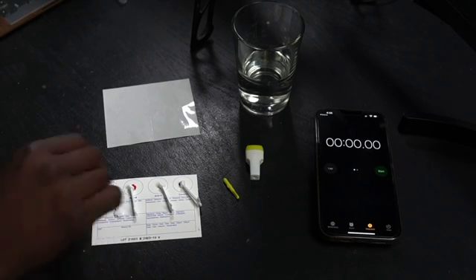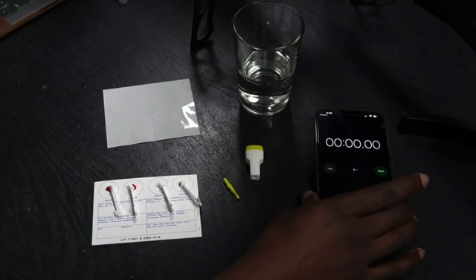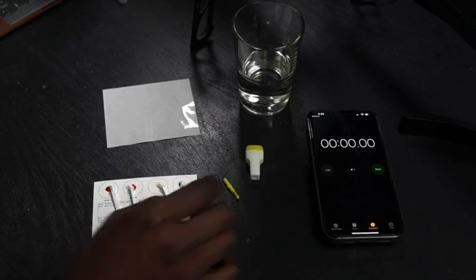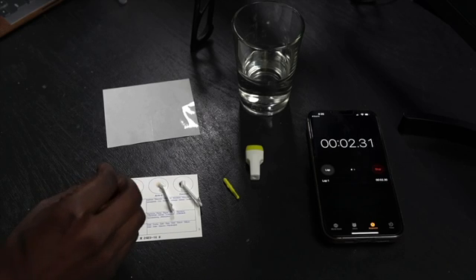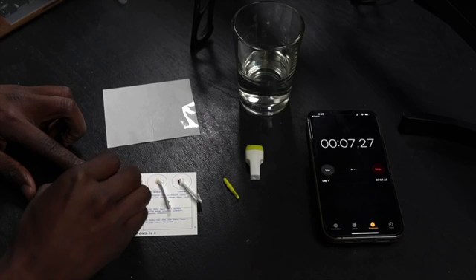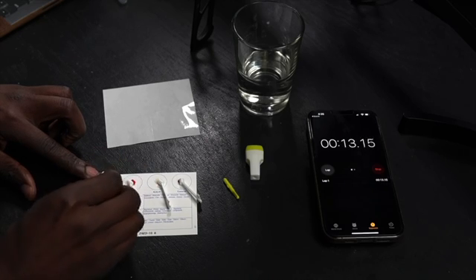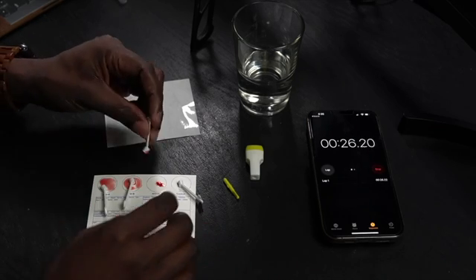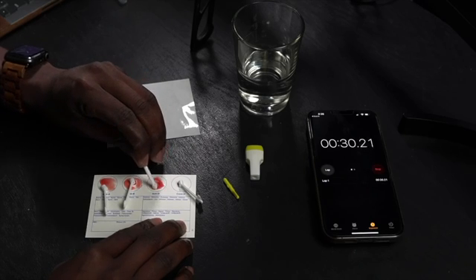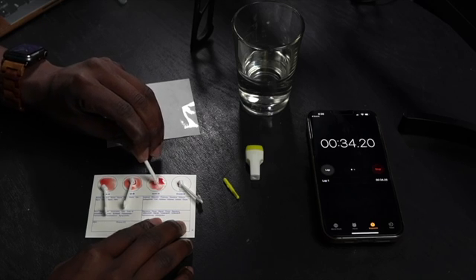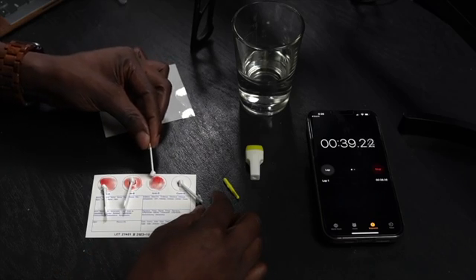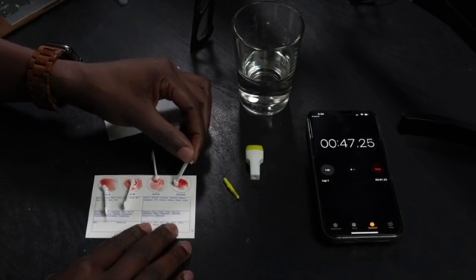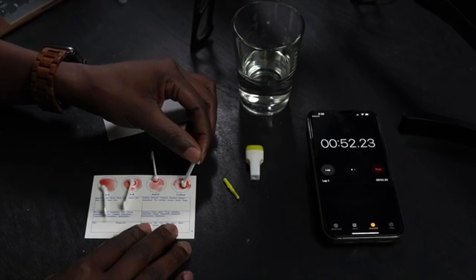All right, so this is when I'm gonna start to mix things around. I'm gonna do it with each one of these. I'm gonna go ahead and set a timer just so that I can get an idea of when 10 seconds have passed. But I'm gonna mix it around for about 10 seconds in each circle. So I'm gonna start it here, and then I'm gonna mix it, mix it, mix it just to get it well dispersed. That's that one. Then I'm gonna do the same thing over here. Let me mix it from this angle so that you can see it a little better. Mix it, mix it, mix it. I can already see something happening here. And lastly for the control group is the one that we shouldn't expect to see anything going on for about 10 seconds.